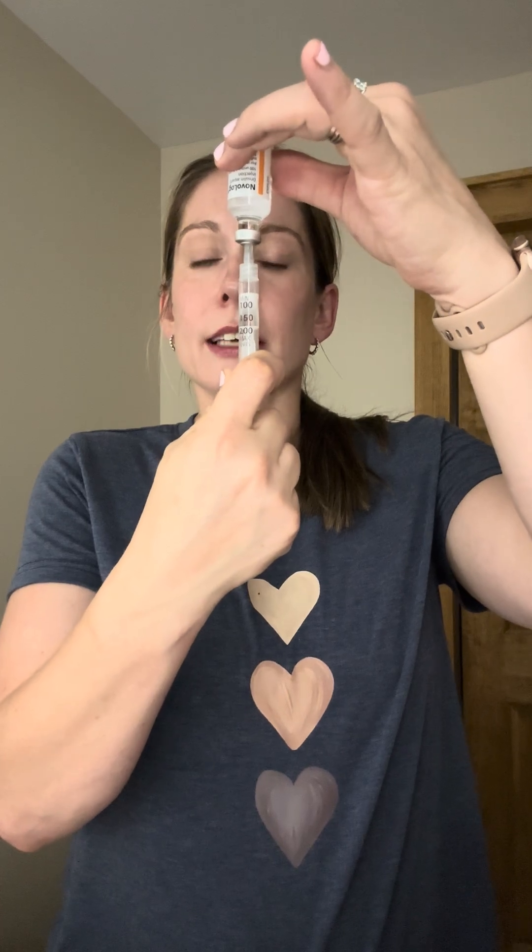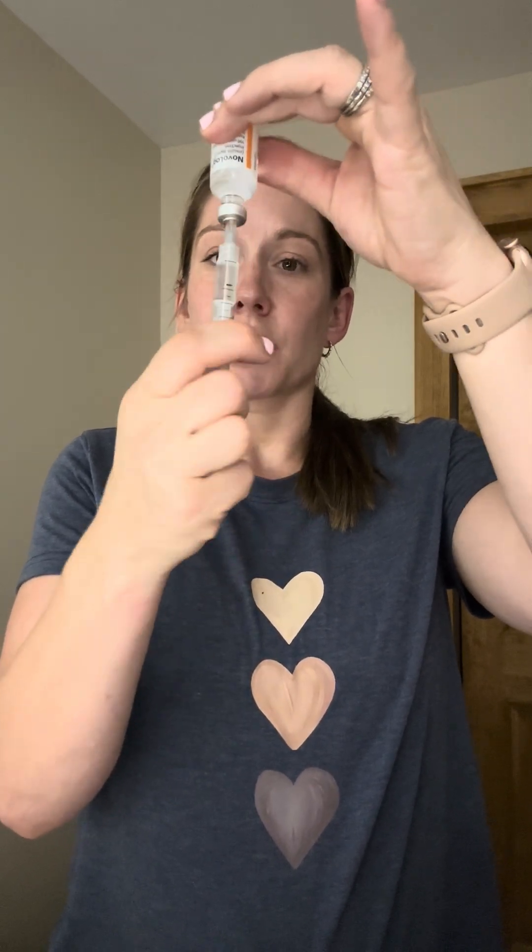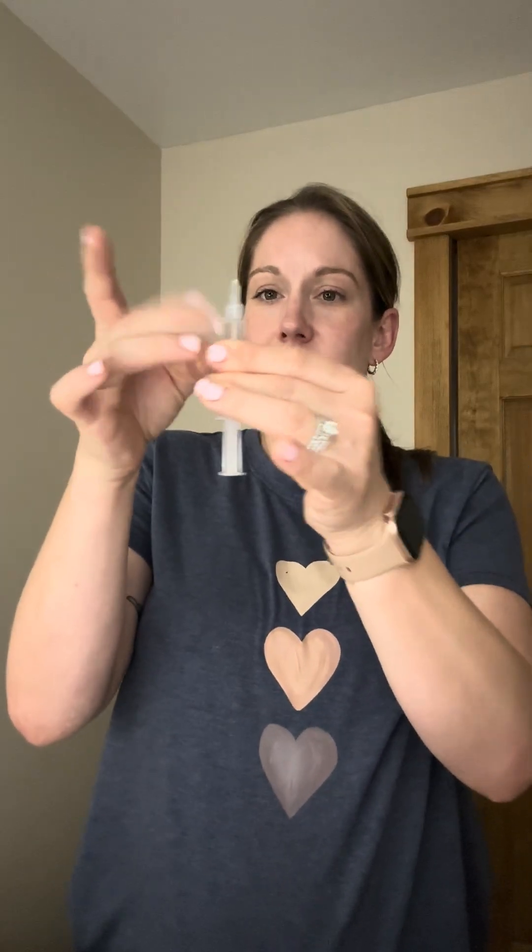So I'm going to measure that out into my syringe. I just think it's so fantastic that Omnipod comes with the syringe. When I first heard about this product I really thought they were going to try to have you pay for the syringes and all these different things, but the fact that the product comes with it and it's not an extra cost has been a really fantastic pro to Omnipod. The pod comes with a syringe so that way you can inject the medicine in yourself — no extra cost there.